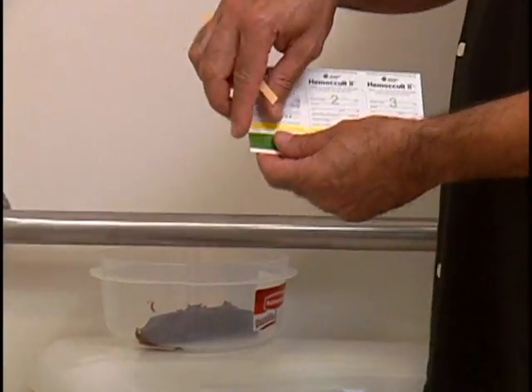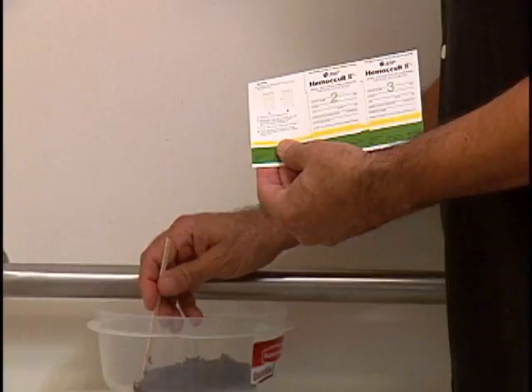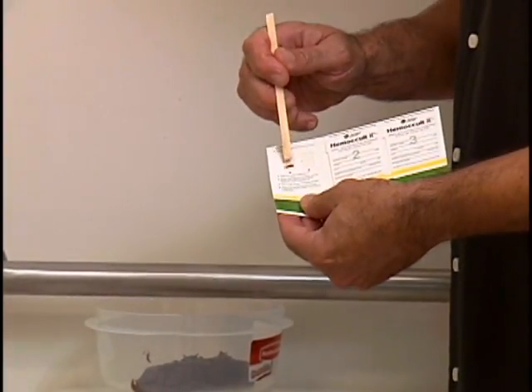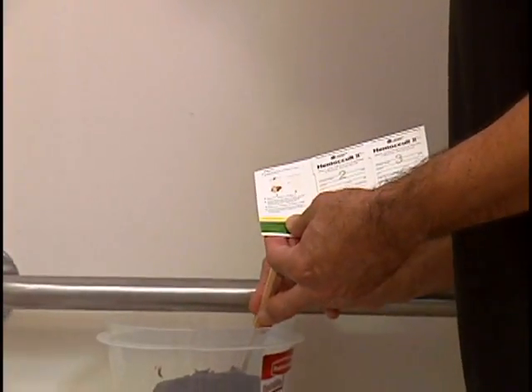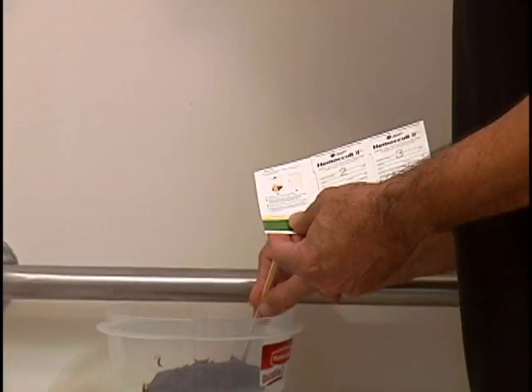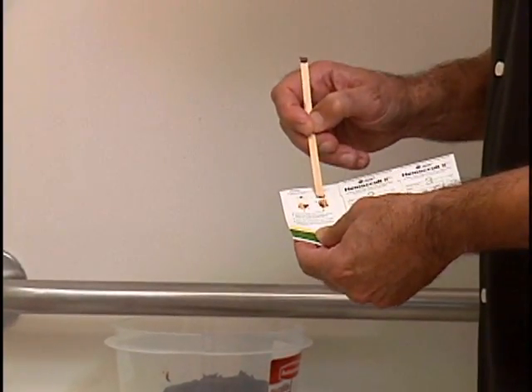Open the front flap of the first cardboard slide located on the left side of the series of 3. Use one of the wooden applicators to obtain a specimen from one part of the stool sample. Spread a very thin smear of the specimen in the square labeled A. Using the same wooden applicator, obtain another specimen from a different area of the stool. This helps detect blood that is not uniformly distributed throughout the stool. Spread a thin smear of the specimen over the filter paper in the square labeled B.